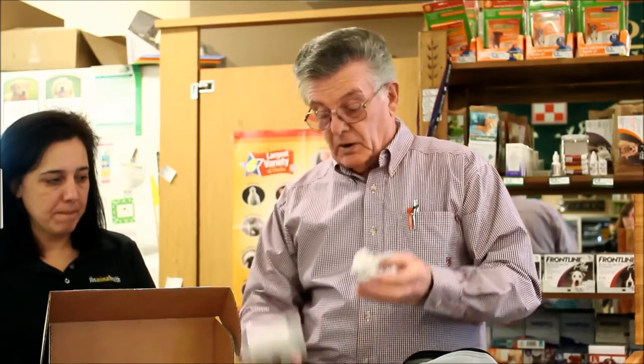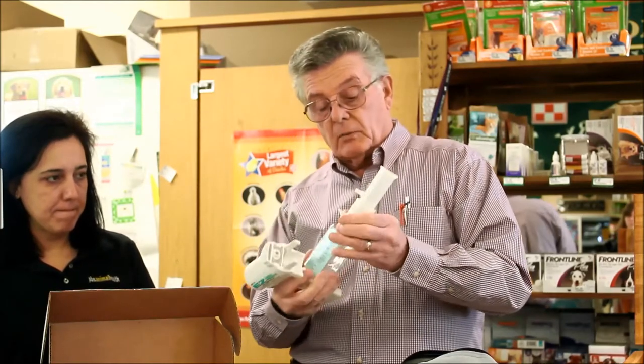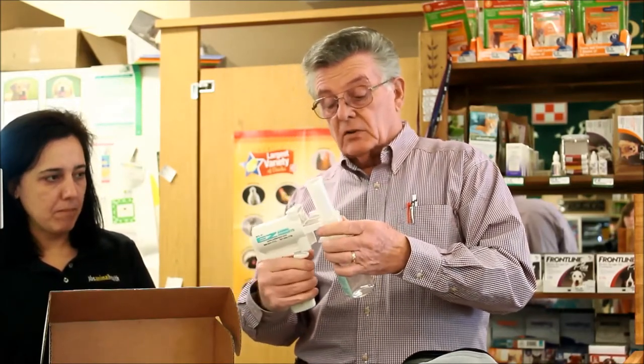We've just got three main hookups. This is a little clip that holds it on — you see it, just pop it in there. Once you've attached the bottle to the pump, just go ahead and line it up and clip it right to it.